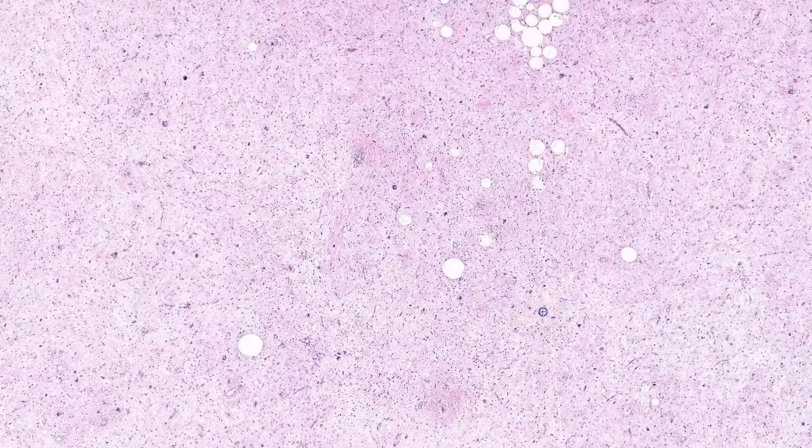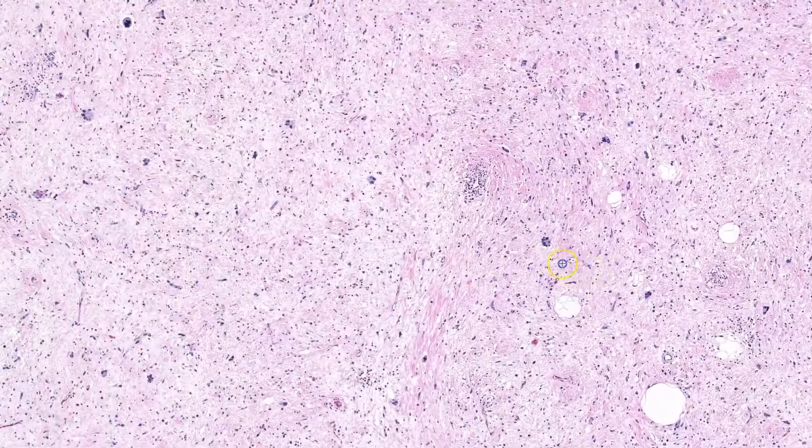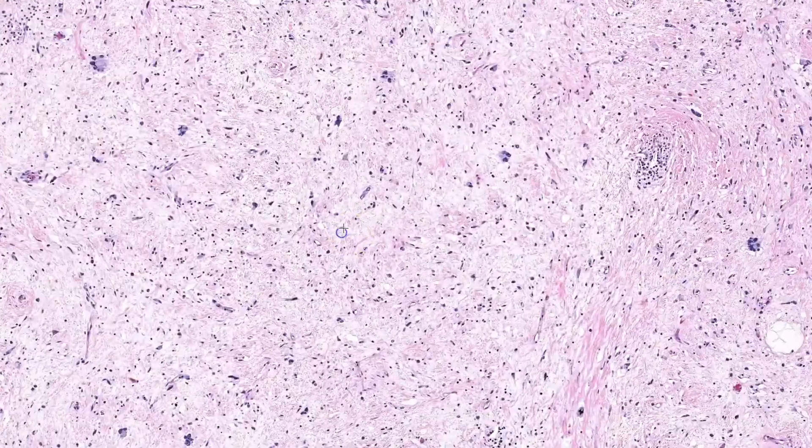Here is a nice example of low-grade dedifferentiation in a well-differentiated liposarcoma. On the left, you can see areas of clear well-differentiated liposarcoma; however, there is widening of the fibroseptal bands. On the right side, you can see a near-complete loss of the adipocytic component, accompanied by an increase in stromal cellularity.